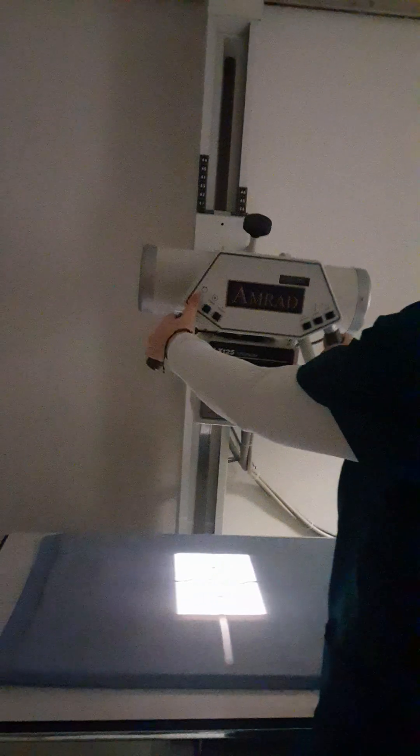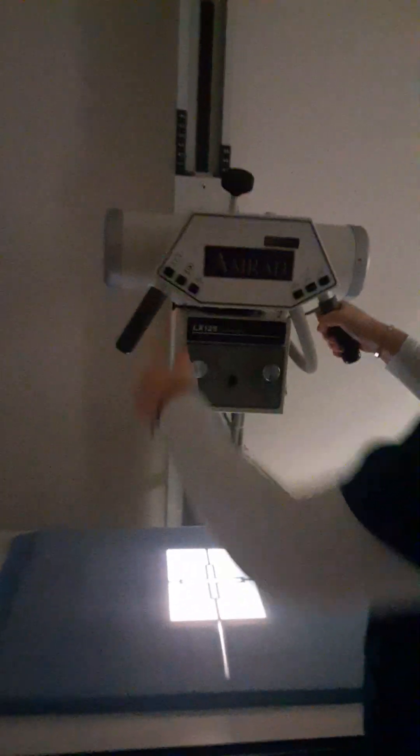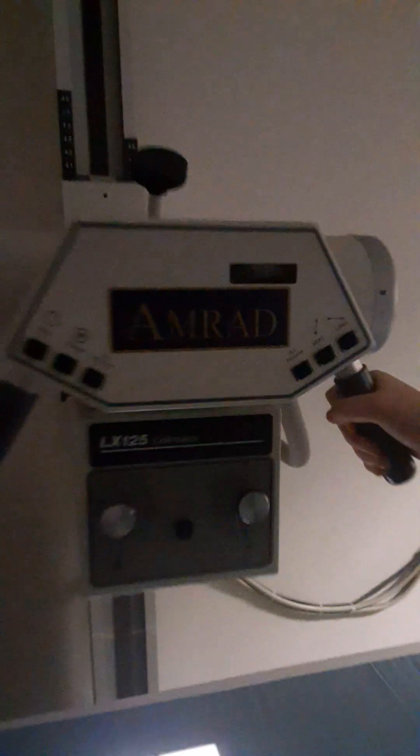If we switch that and go to table bucky, go ahead and turn the tube to table bucky. We're no longer using that longitudinal numbers for anything. We just want that to be right at zero, to be straight down.